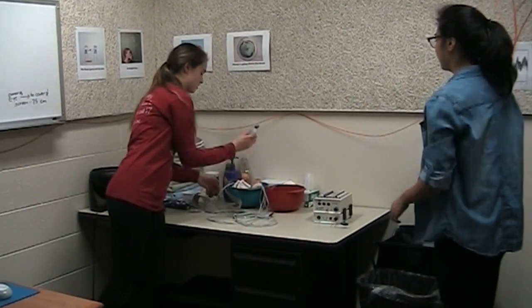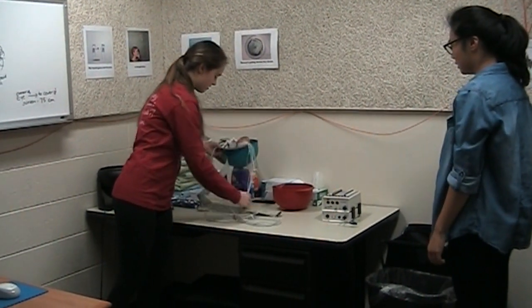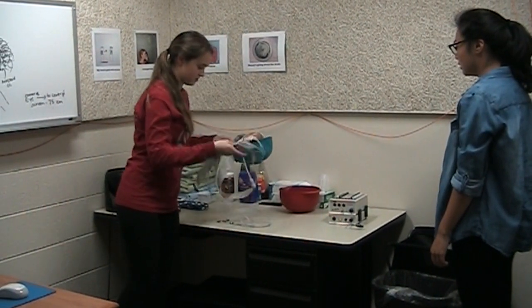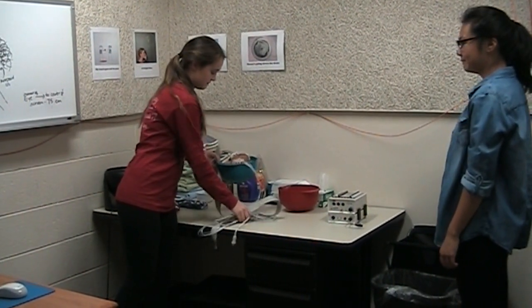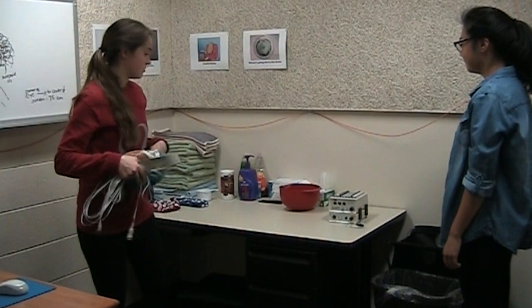And then we take our syringes, a towel that we grab the cap and the electrodes in, and a bowl to the prep room.